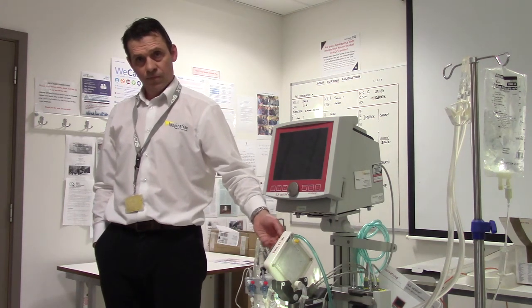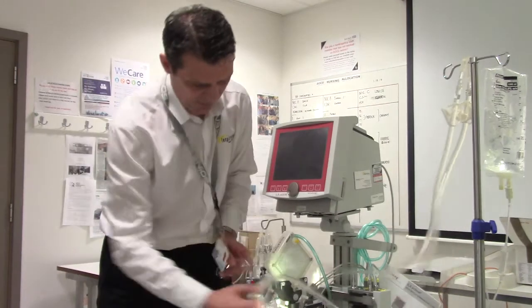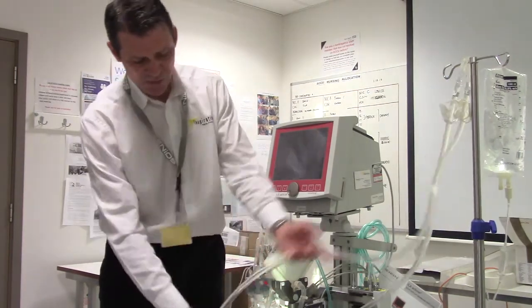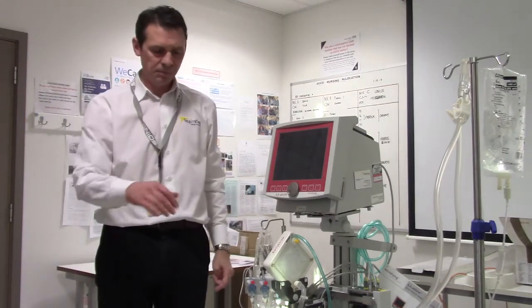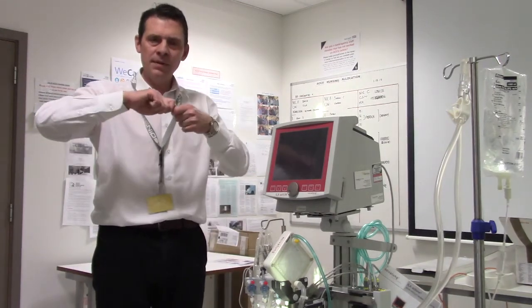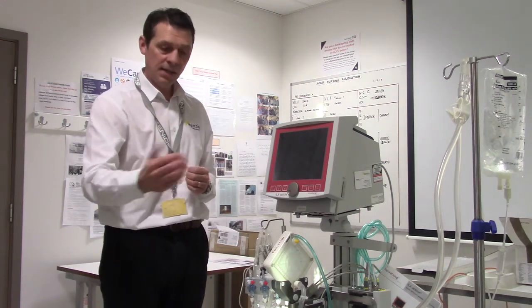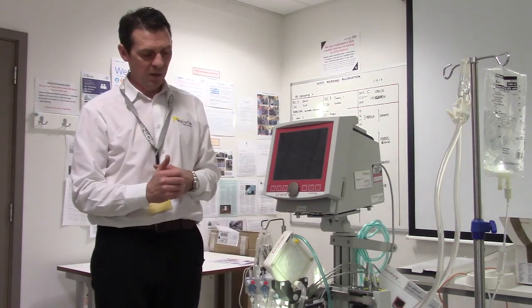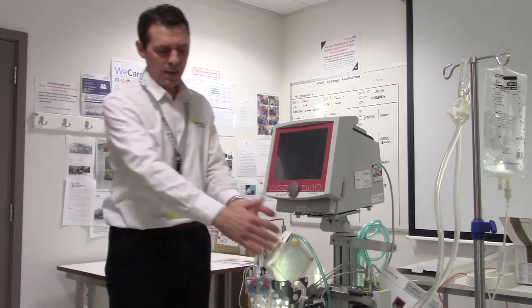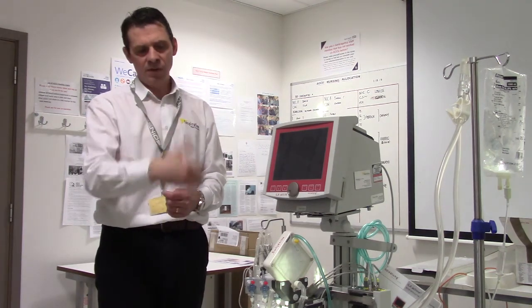When stopping therapy, is there any way to return blood? Yes — attach a bag of fluid to a three-way tap nearby, or alternatively attach it to the P1 port. That means you'll have a small volume of blood remaining in the circuit, but you're keeping the system relatively sterile. Within the circuit, using a three-way tap, run a bag of fluid with the pump going very slowly. That's about 240ml in the circuit straight away — a small unit. Keep the pump going gently at around 300ml per hour. It's always worth giving them their blood back, even if there are signs of clotting — you're not flushing any more clot back than was already circulating with blood in it.